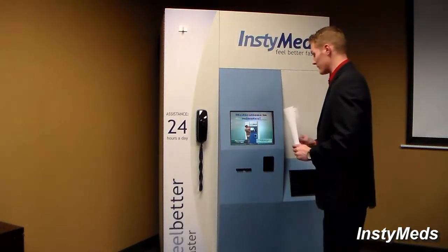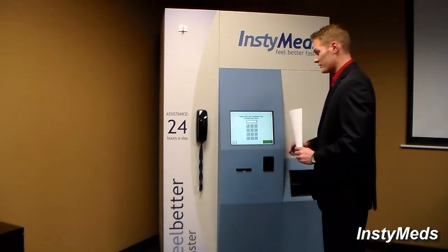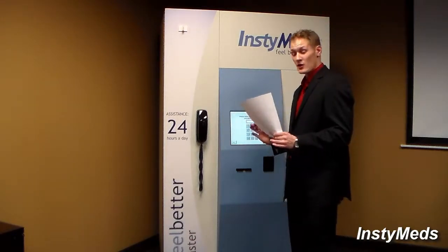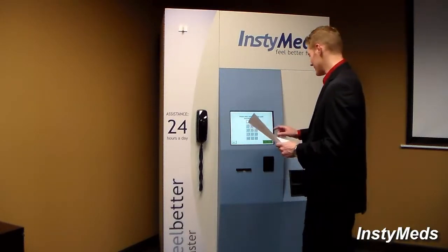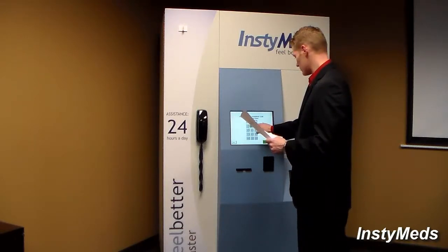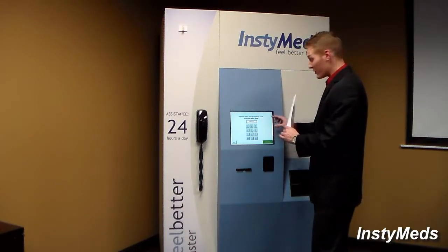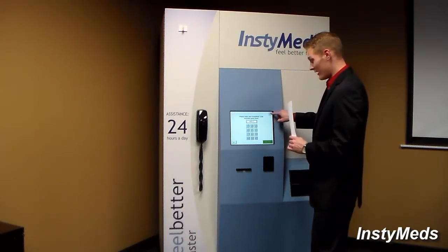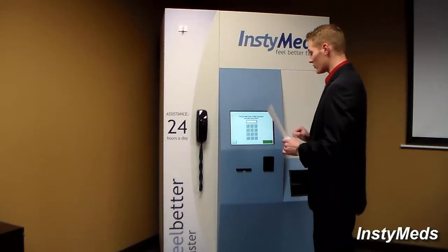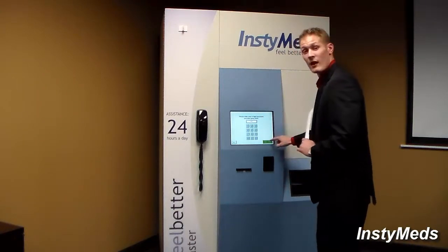This is the dispenser screen. So the first thing that I would want to do is press start. At this point, I have my own ID and my password. So first I will put in my ID number. And you can't see it on the screen right now, but there's actually a hidden button right up in the right-hand corner, and this is for security purposes. And now I'll put in my 4-digit password. And then I'll press next.